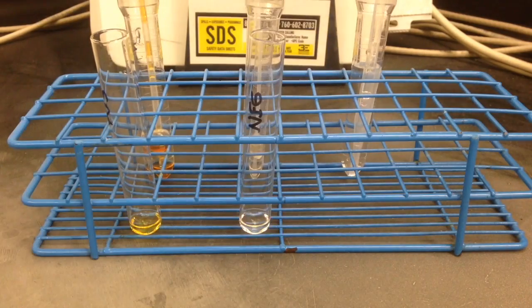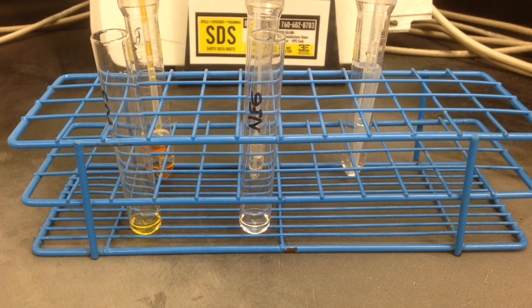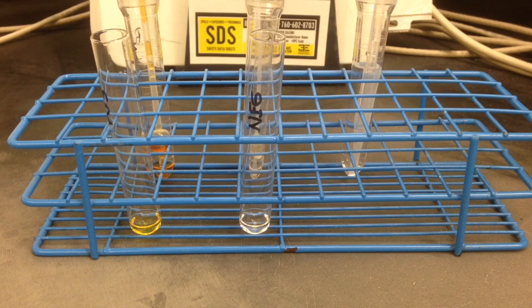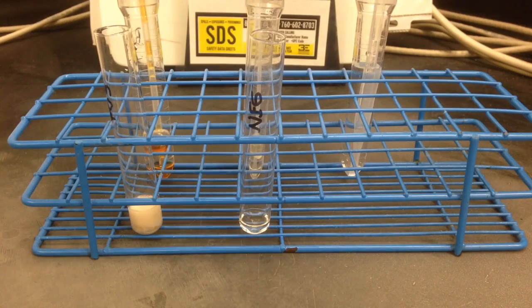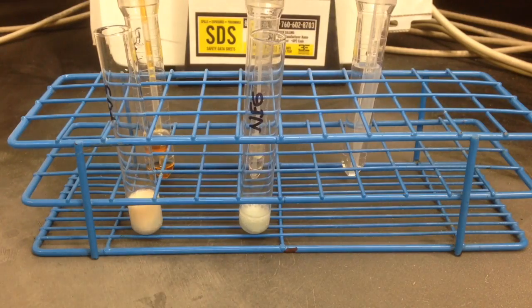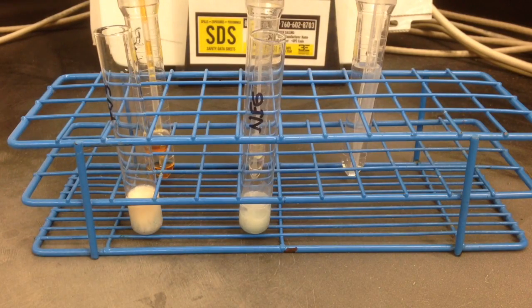Okay, let's give it a quick mix. And then you go ahead and add your ClinI test tablets. Now, it's important to note that you do not want to use plastic containers for this test because there is a heating agent inside, and the specimens themselves get very hot.